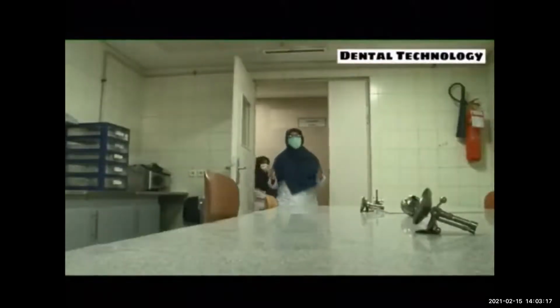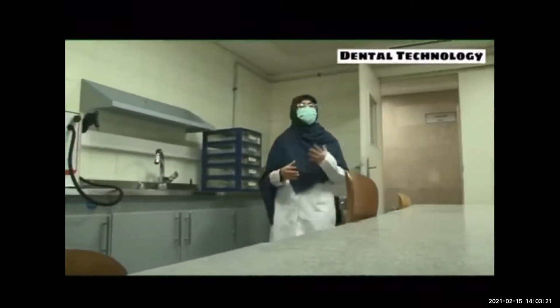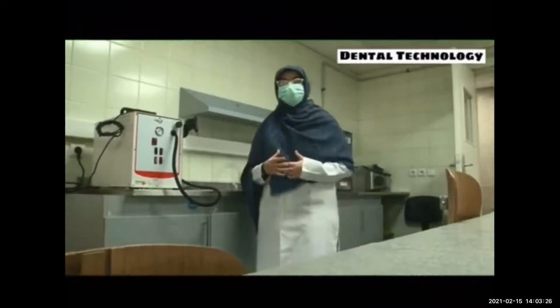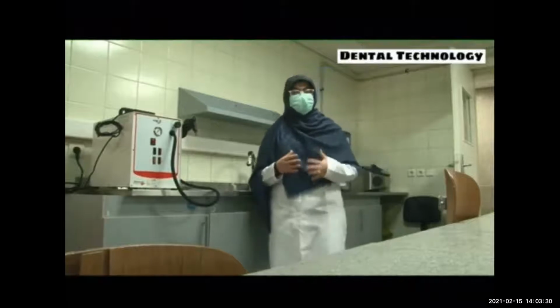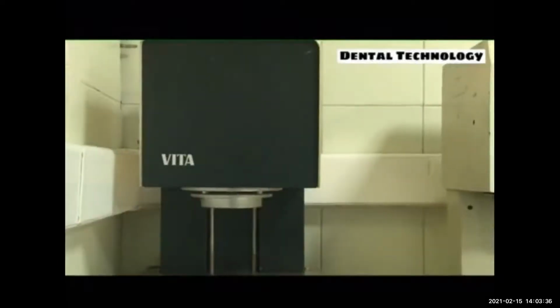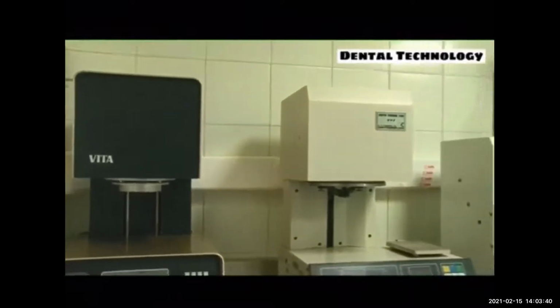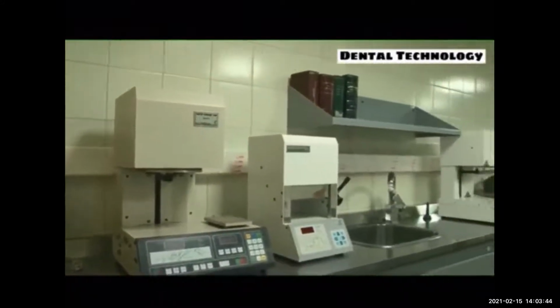Here we are in the porcelain room. The application of porcelain to a substructure is one of the most artistic and precise steps of making prostheses. Moreover, instruments and techniques used for applying porcelain are so numerous and varied. Here we can see different types of furnaces used during the production of ceramic restorations, from older generations to newer ones.